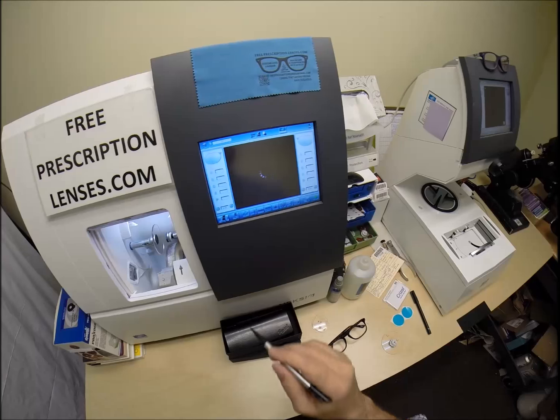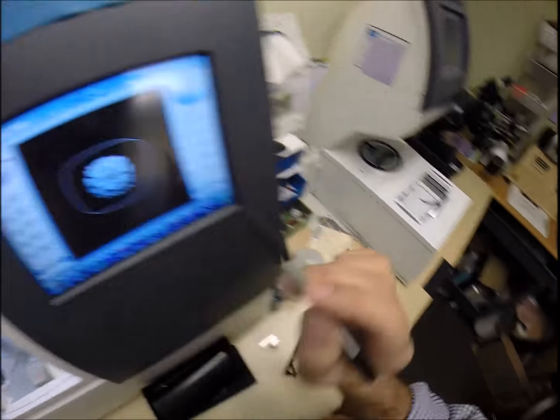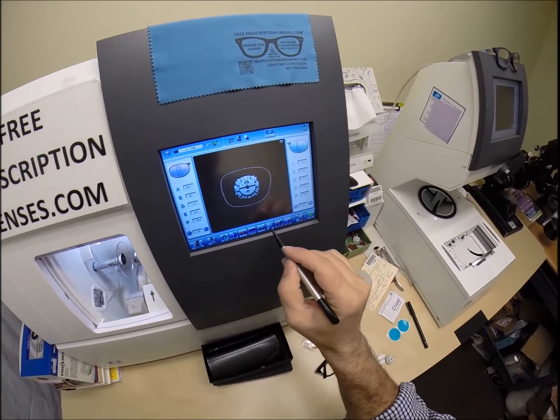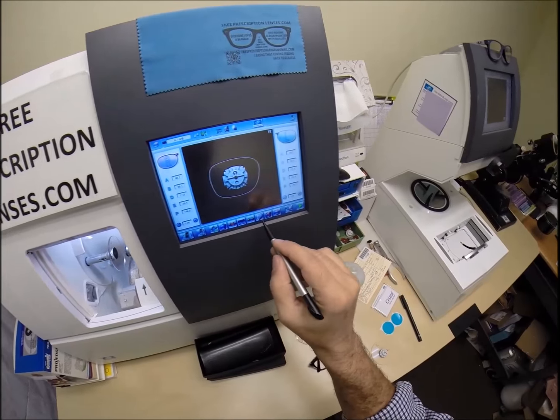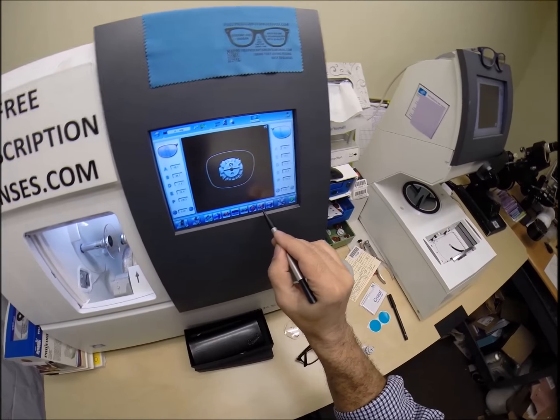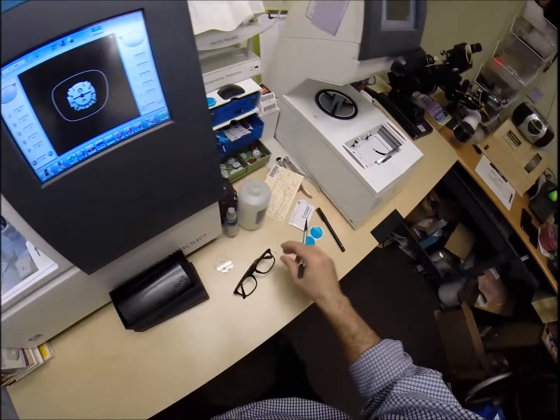Your lens comes with yellow paint all over the front of it, and I have to use a lot of solvent to remove that. Under this green light I take this pen - there's a little circle around a black dot and an engraving which tells me which brand of progressive you're wearing, the material it's made of - the P is for polycarbonate. It has another dot on the other side, and below that is a number which says 15, underlined.